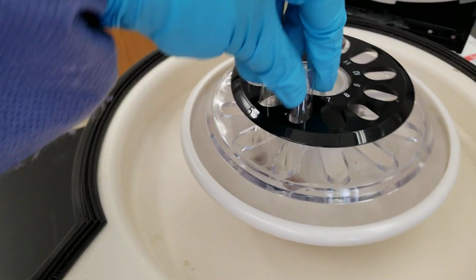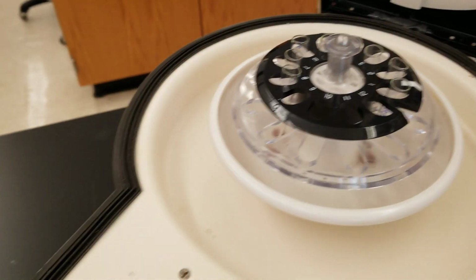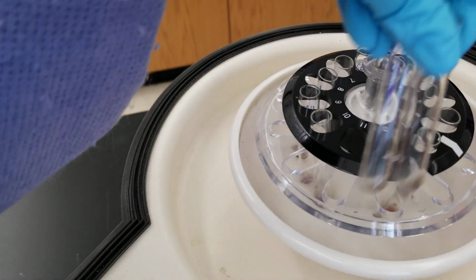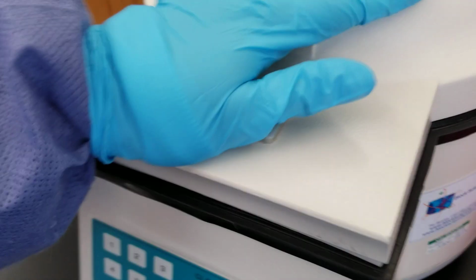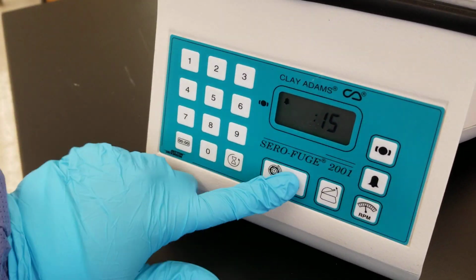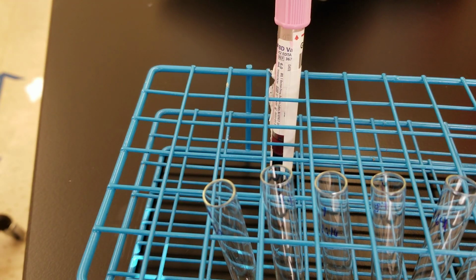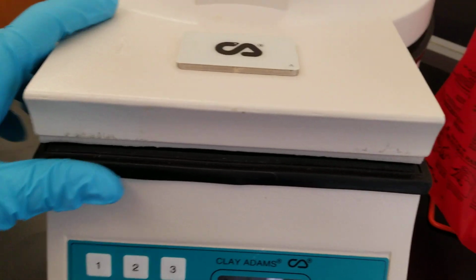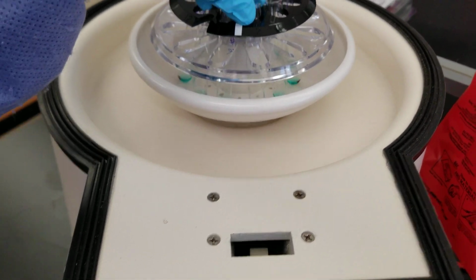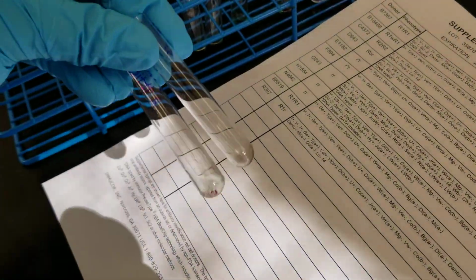So you get that muddy green look in the reaction tube when you know that you've agitated it well. And like we did last time, the first 2 tubes of the other visit will be in there as well. It's because I'm not using 2 hands. There we go. All right, it's spinning now. All right, so the lovely buzzer went off. Now let's read them. So they might have a bigger reaction than what we had before. We'll see.